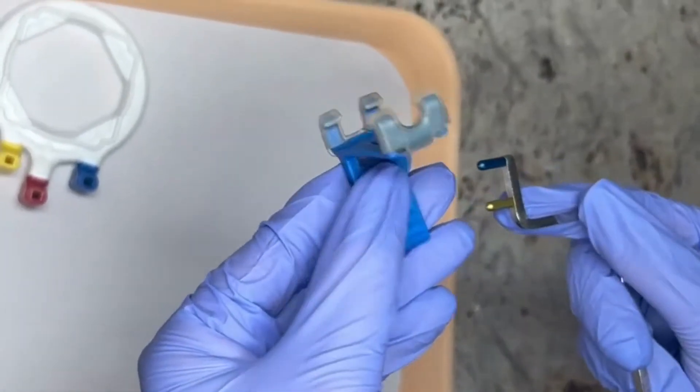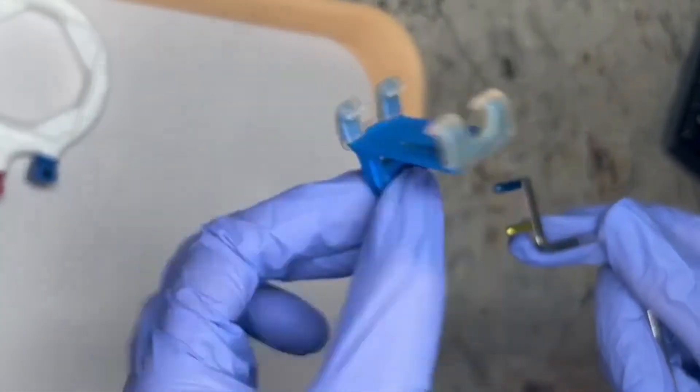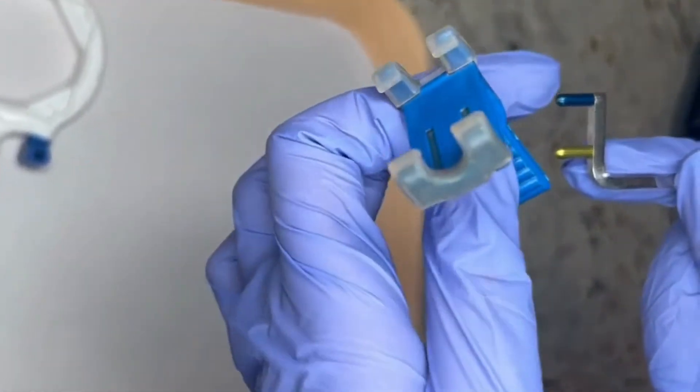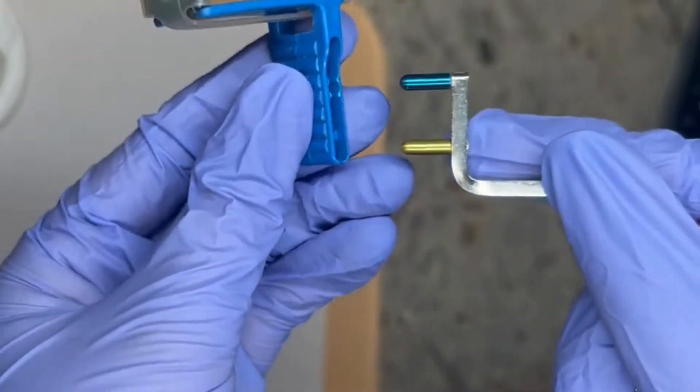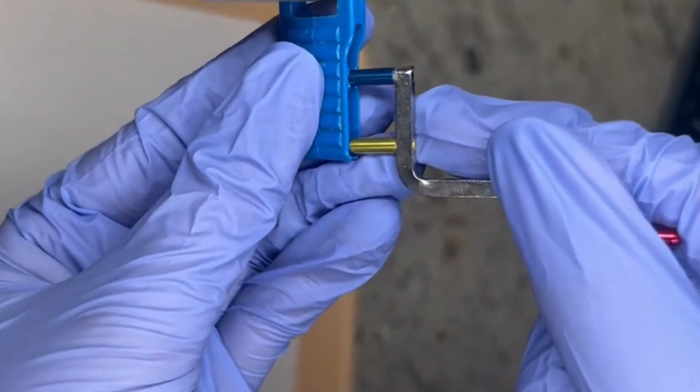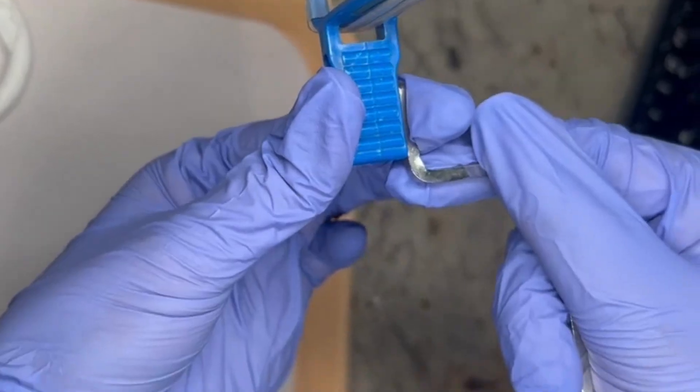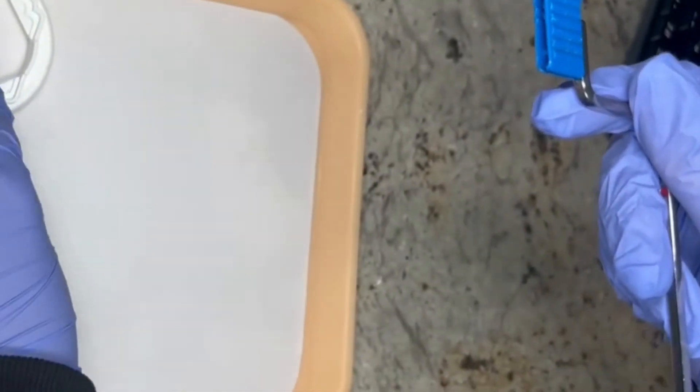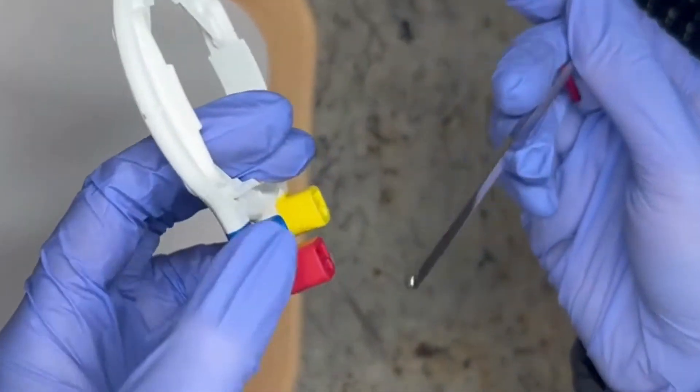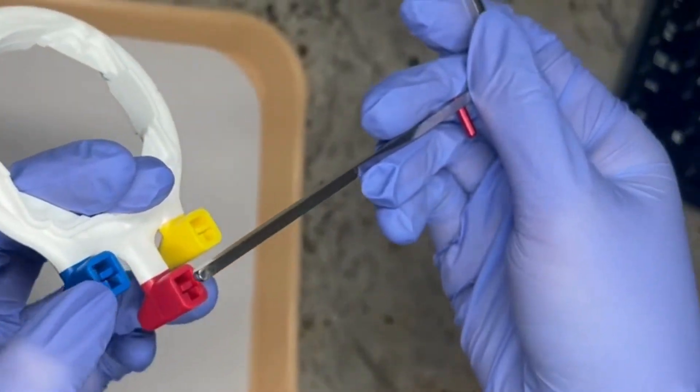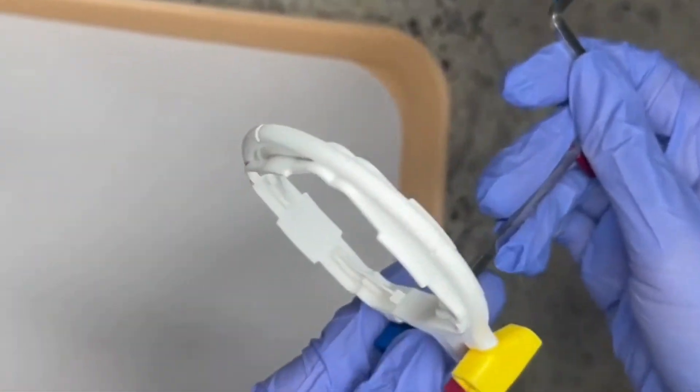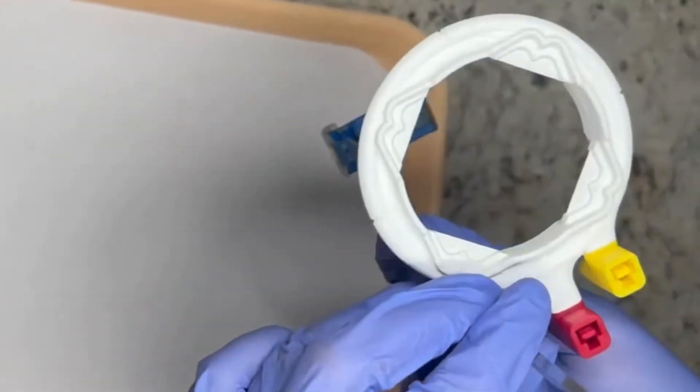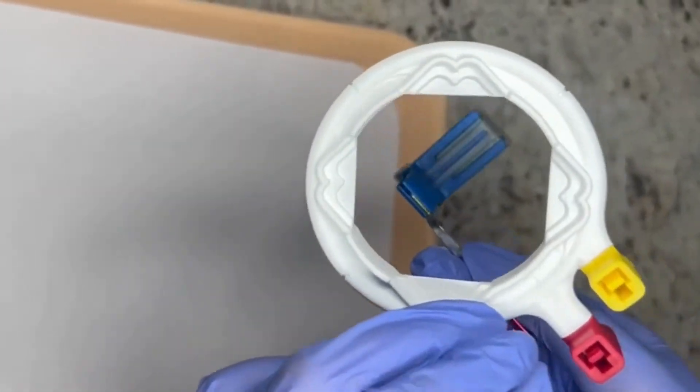Now to show the blue rings, or the ones for the anterior, we're going to use this part right here where it's blue and put it right in, making sure it's all the way in. We're going to grab our ring and put it in this part. Again you just want to double check to make sure that it's nice and centered.